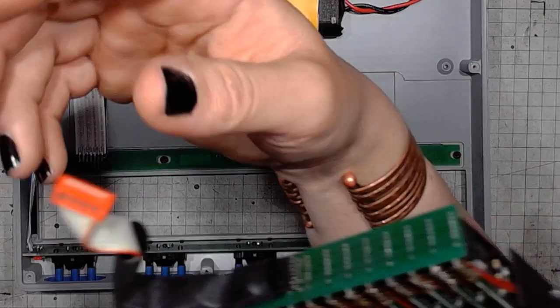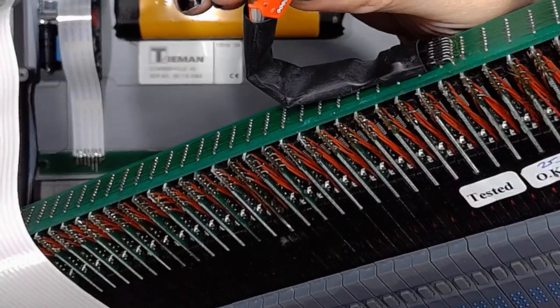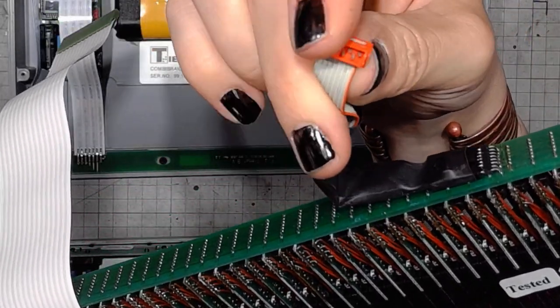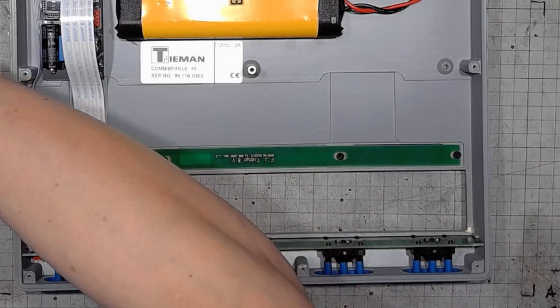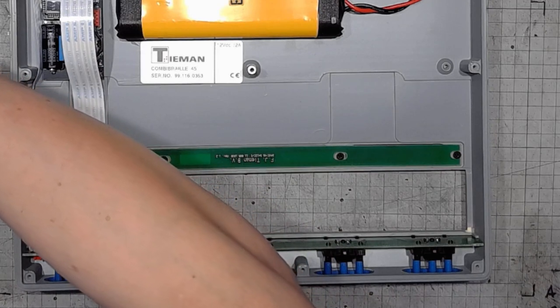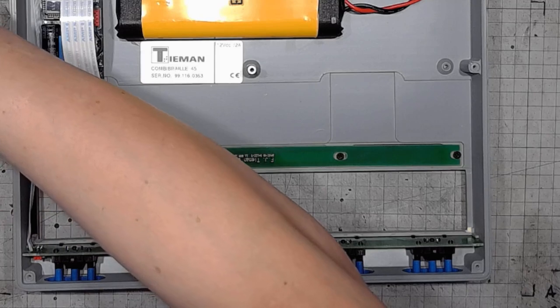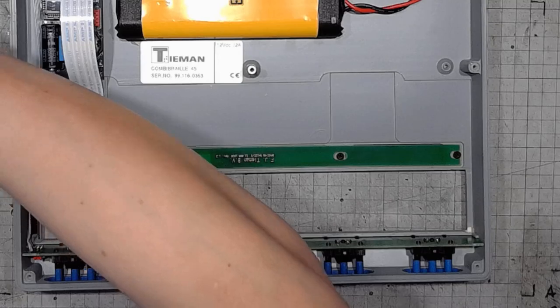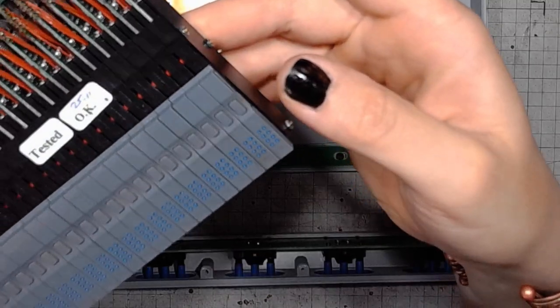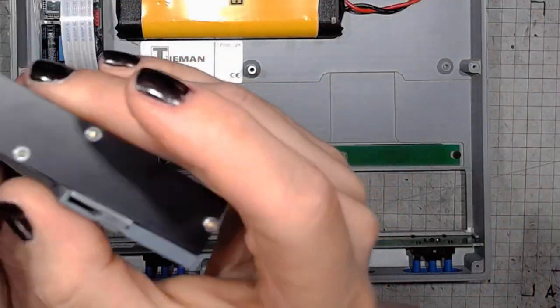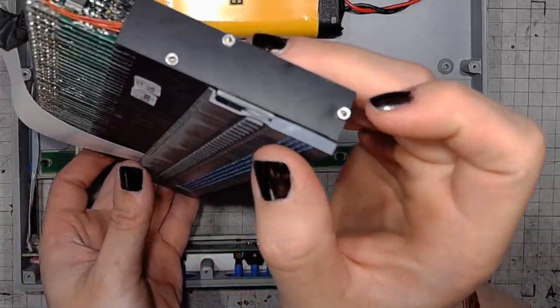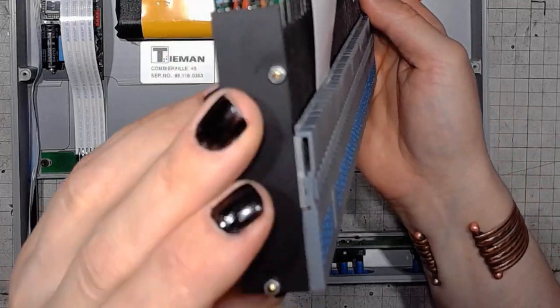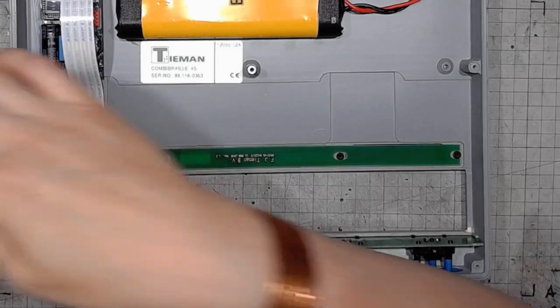I will now carefully put it aside. By the way, take a look at those connectors. Again, thing of beauty, joy forever, real deal professional electronics. And the whole device is full of them. One more thing I wanted to show you about this assembly is that there are three threaded rods made of brass going all the way through all of those modules, and that's how they are put together.